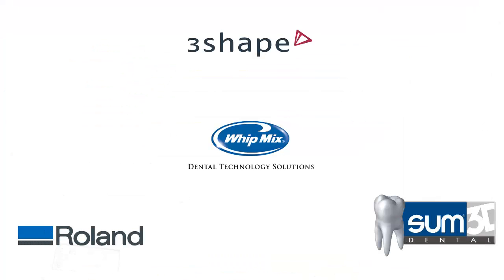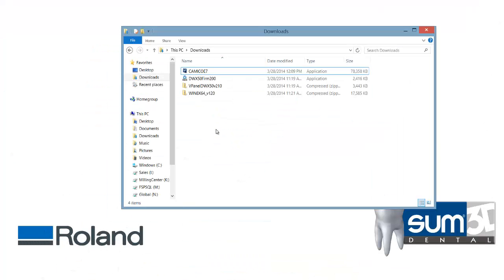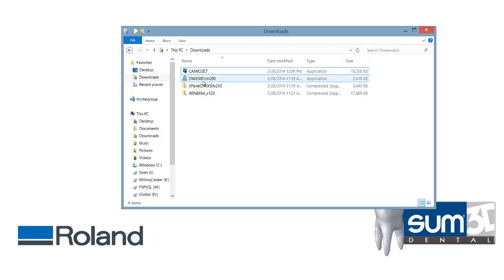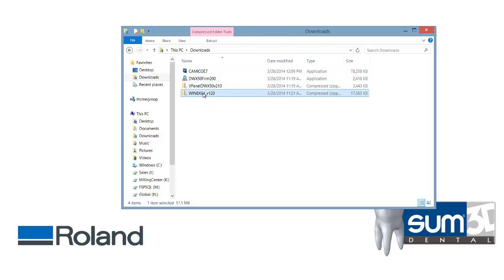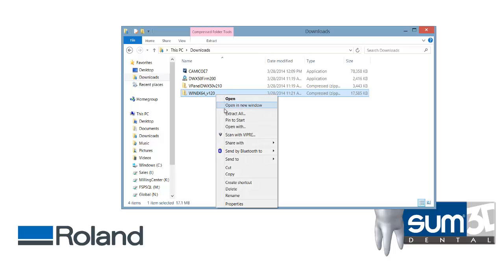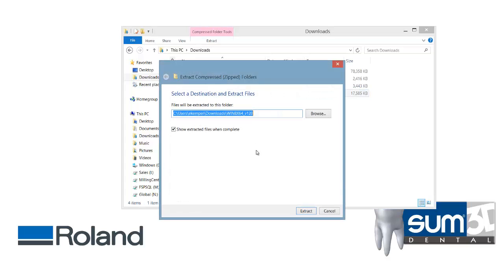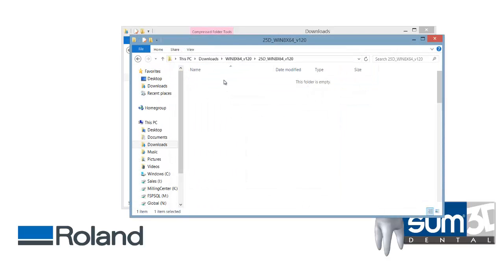Once the files have downloaded, open your download folder. It's important to install these updates in the right order. The first one is the driver. Make sure your Roland machine is off when you install the driver. And then extract the installer file.